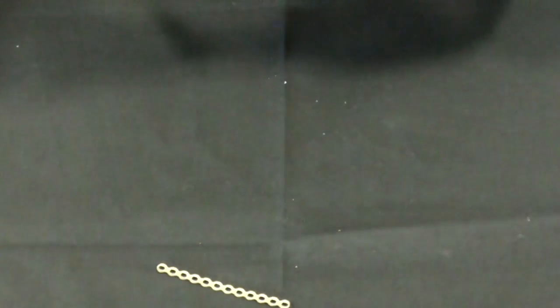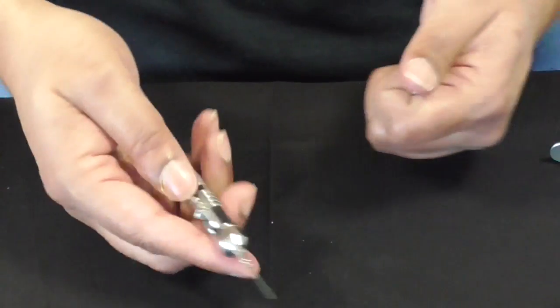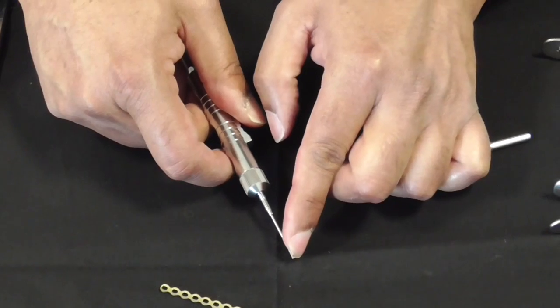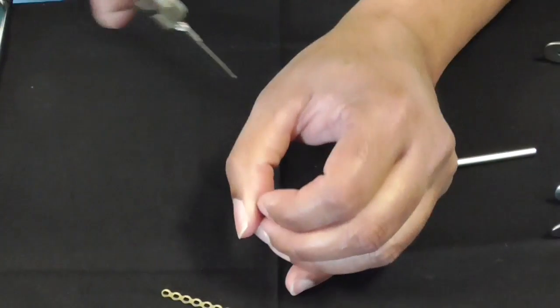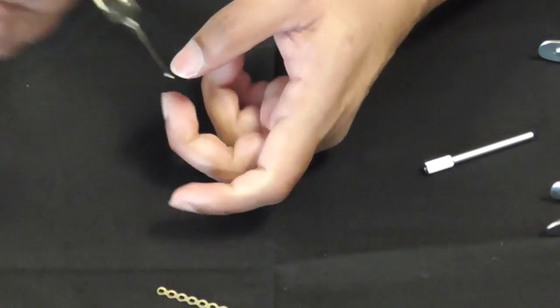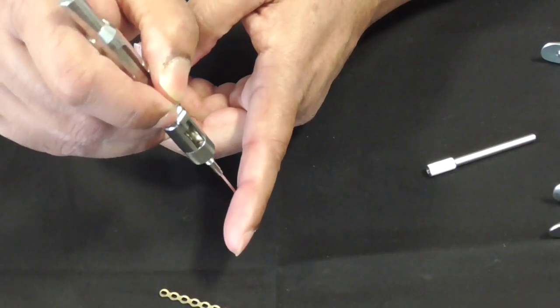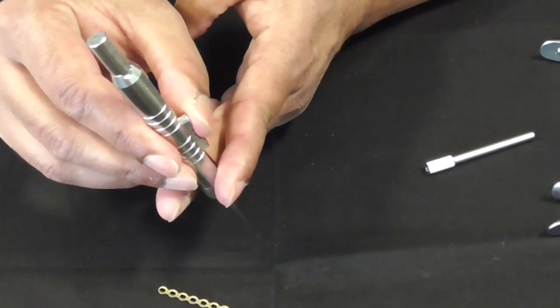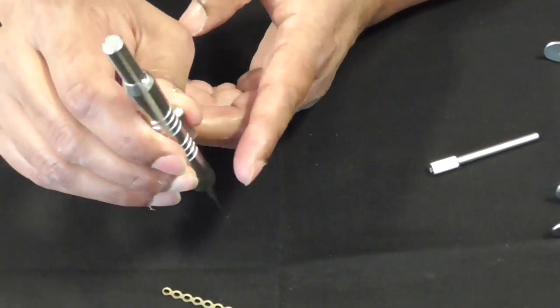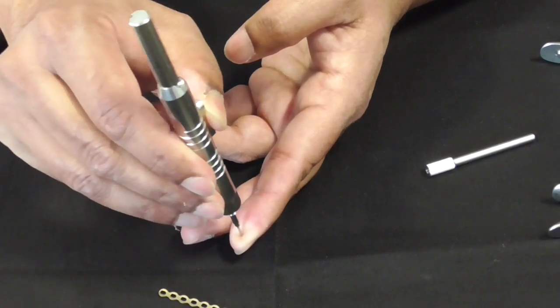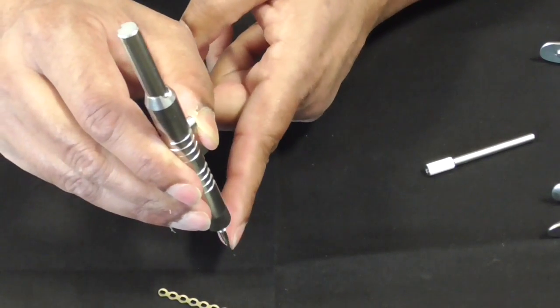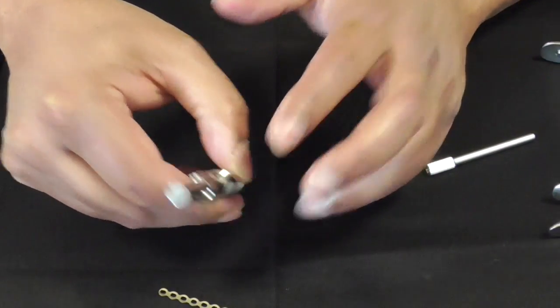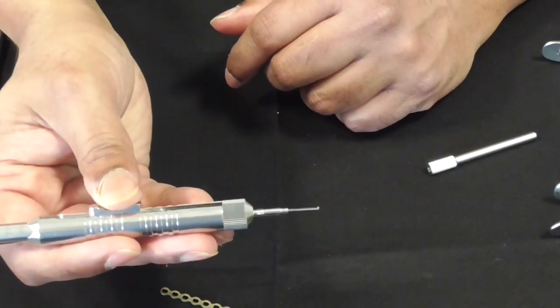The final bit is when you've made your drill hole and you want to determine what length of screw you want, you use a depth gauge. A depth gauge essentially is a little stick with a little hook at the end. You go through both cortices and it catches on the far cortex, that little lip. Then you slide this bit, the thumb, you hold up the thumb and you slide this bit down. This top bit goes onto the cortex and you can read off what's the length of the screw. It's a very ingenious little device.